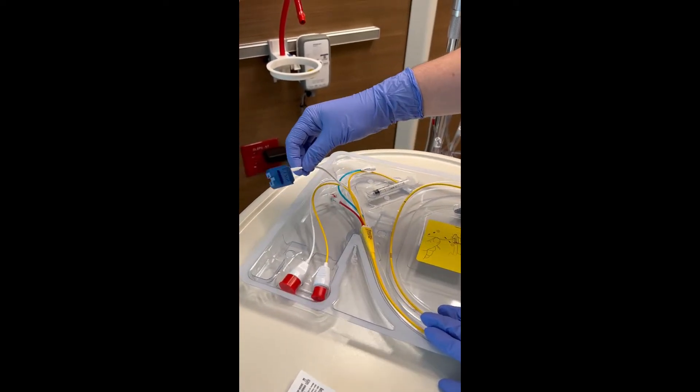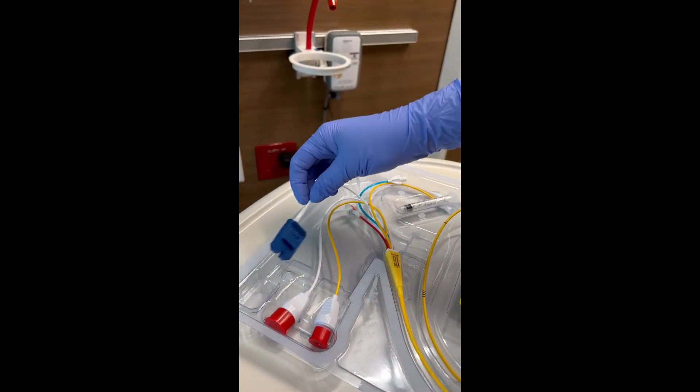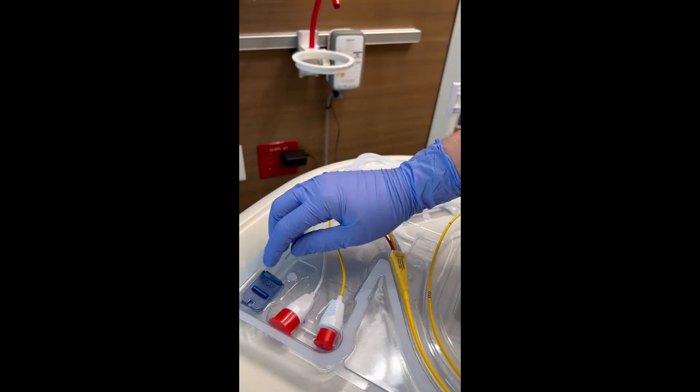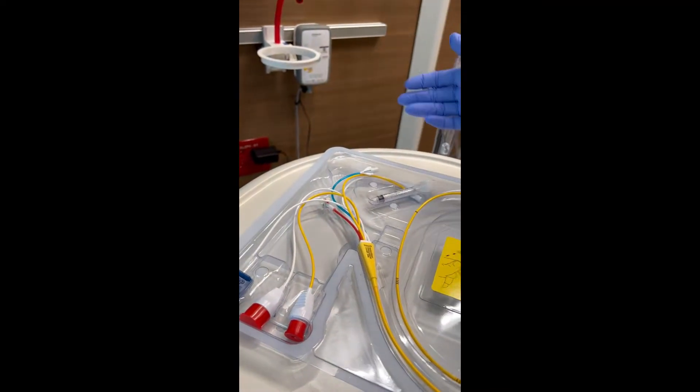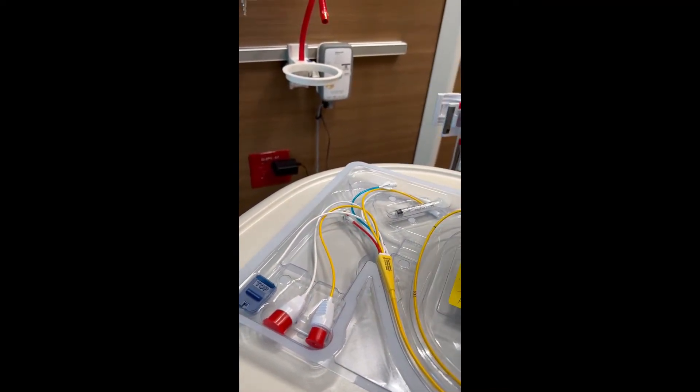This blue chip here is for your SVO2. These Swans have an option to measure SVO2, or your mixed venous oxygenation, and you can calibrate it every 24 hours, so that'll give you a live reading.